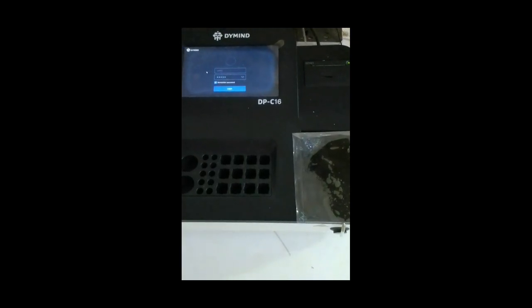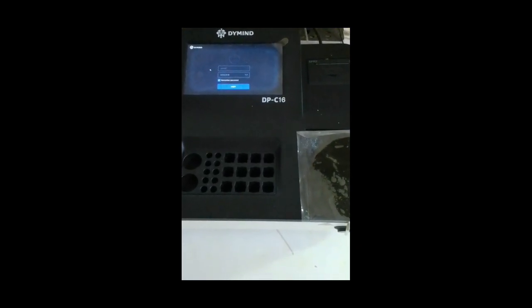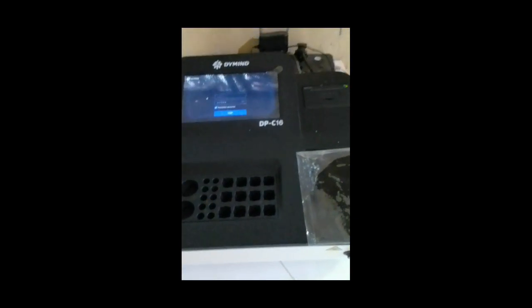Monitors treatment progress. It is used to track changes in laboratory values during treatment and evaluate patient recovery. Assists in disease diagnosis. It provides important biochemical information for diagnosing conditions such as diabetes, kidney disease, liver disease, and metabolic disorders. Performs high-volume testing efficiently. Automated chemistry analyzers can process many samples quickly and accurately, improving laboratory productivity.